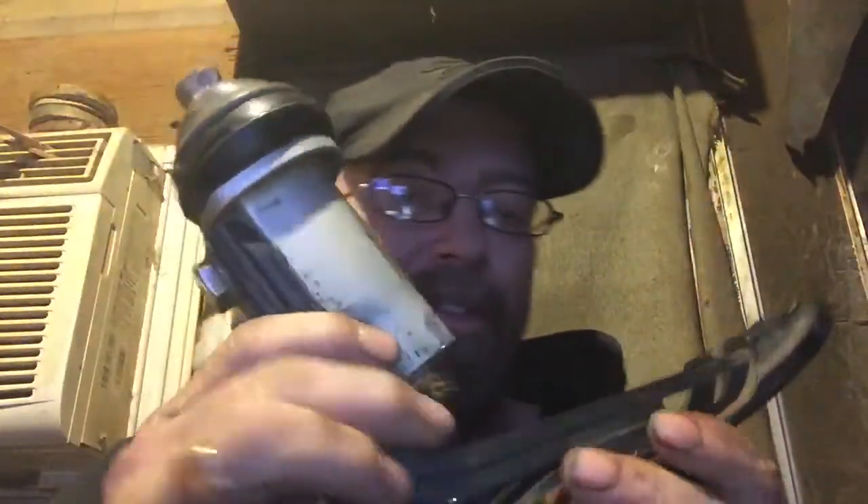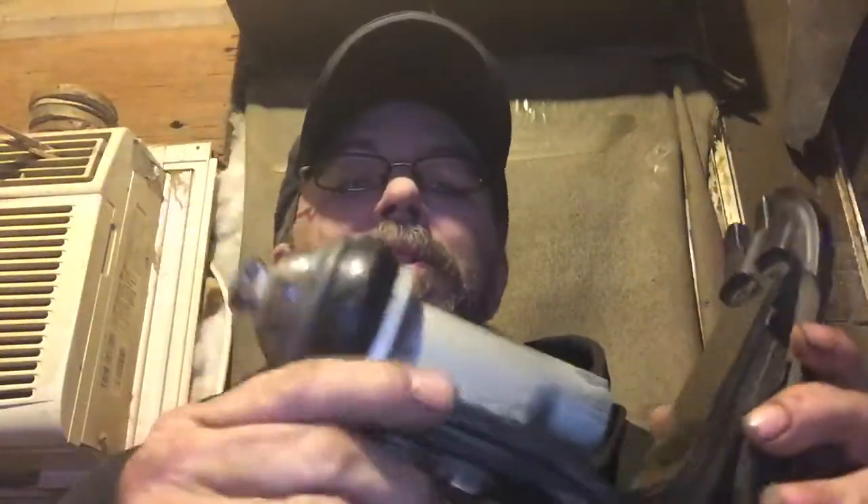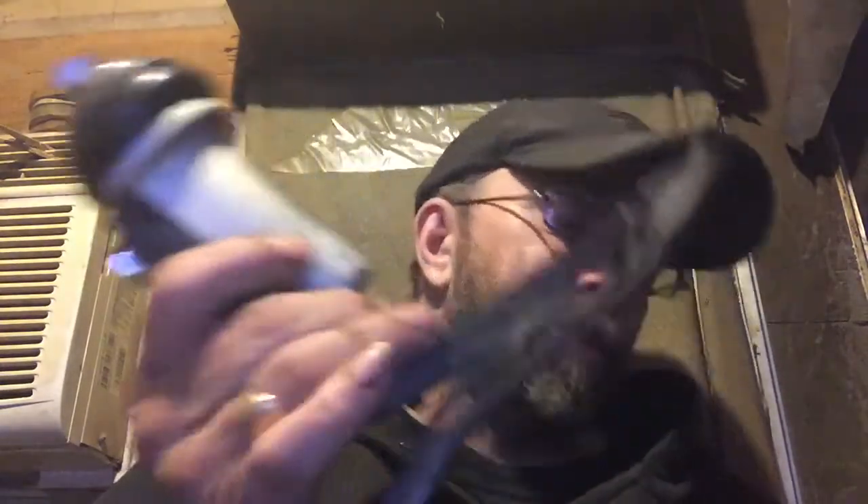As for the foot itself, there's not really much you can inspect on this. I'll look around this rubber shock. My previous leg had a low profile shock, my other one had a higher up shock. The rubber started to go and it was getting to the point where it was about to fail. That's pretty much all you can do with the foot.